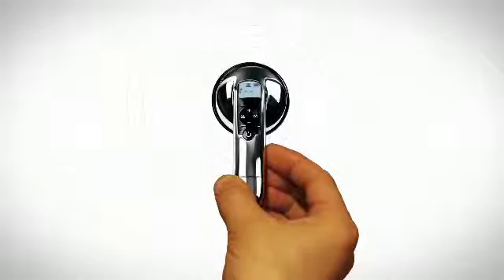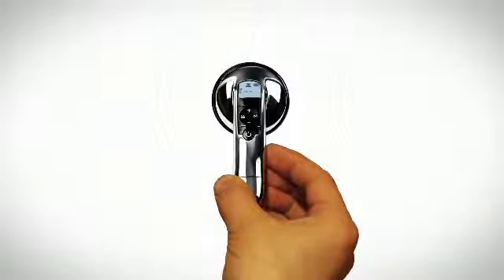You may want to hold the chest piece with your fingertips rather than a cupped hand so the wireless antenna can function optimally.